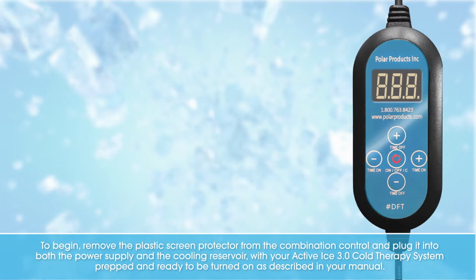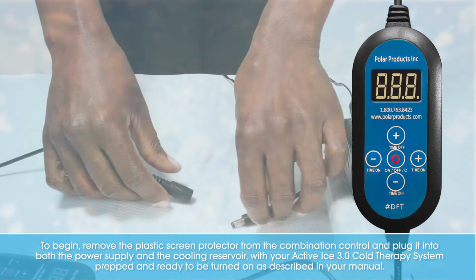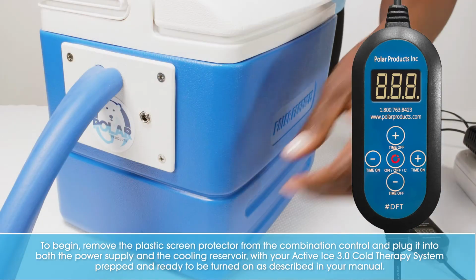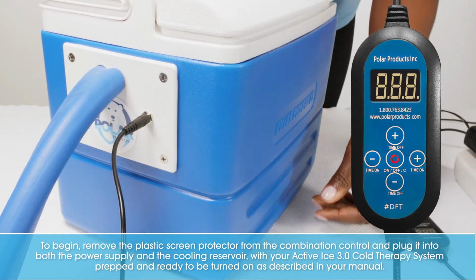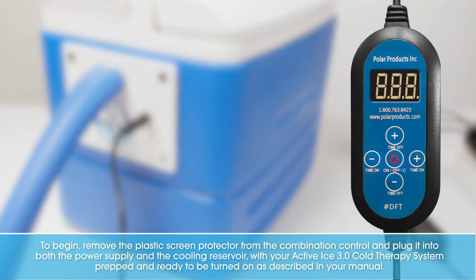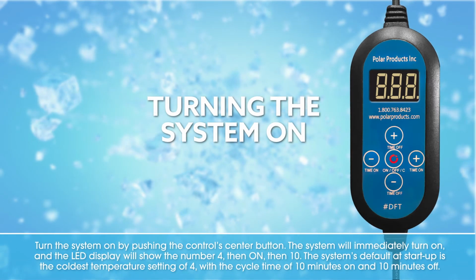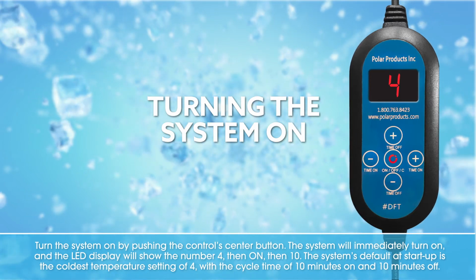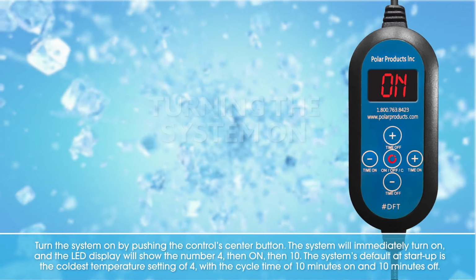To begin, remove the plastic screen protector from the combination control and plug it into both the power supply and the cooling reservoir with your Active Ice 3.0 Cold Therapy System prepped and ready to be turned on as described in your manual. Turn the system on by pushing the control's center button. The system will immediately turn on and the LED display will show the number 4, then on, then 10.